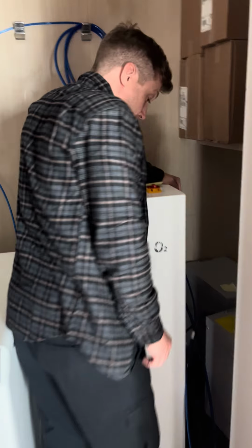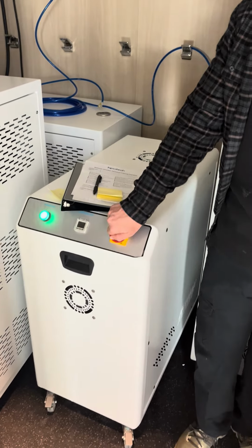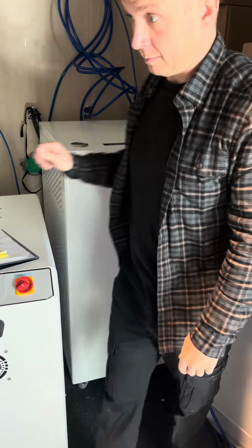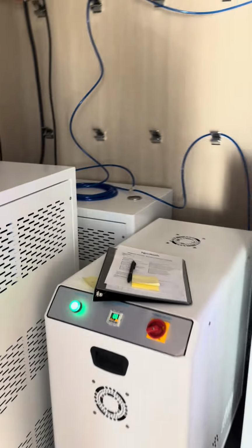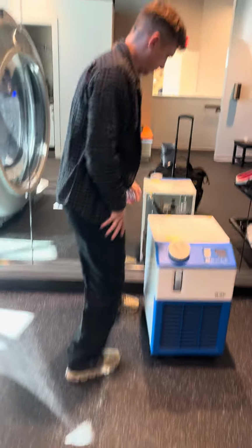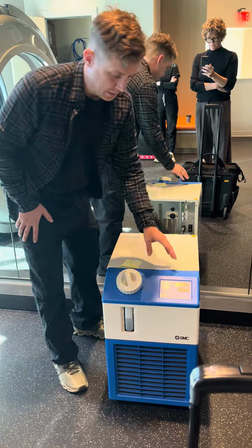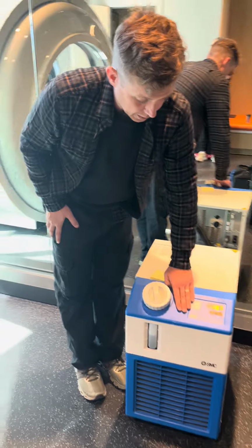Okay. So now both those are on, and then we have compressor number 2. Oxygen concentrators number 3. Red switches to the right to number 1. Air chiller number 4. Black switch on the back. And then hit run.